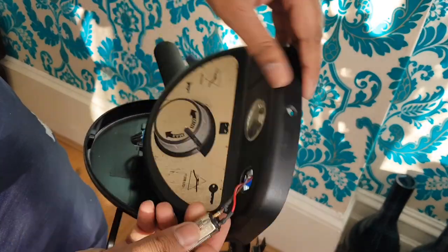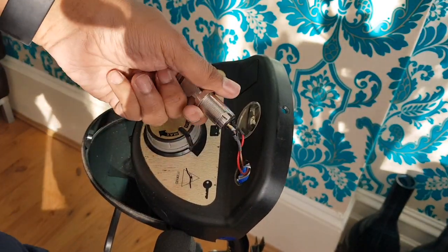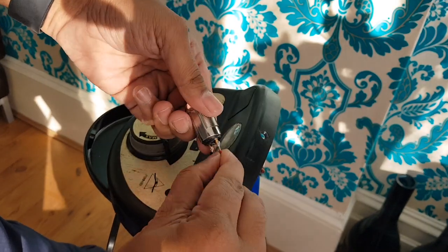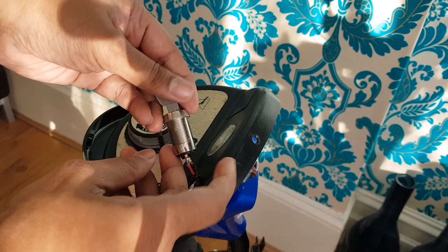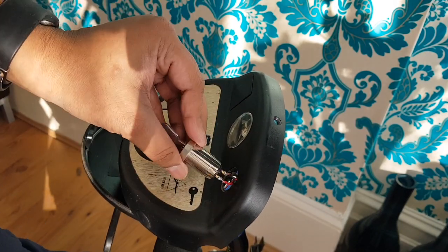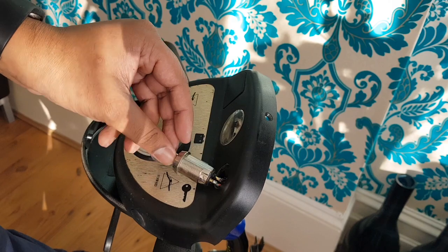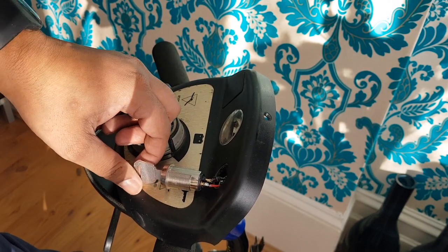Done. You can see it's soldered on, so let's strip this one back. We need to get hold of one of these — or the whole unit including the key. The hardest part is making sure it's the right size to fit in the housing. Even if it's not the same length, as long as the barrel fits in here, we're okay. Let me find one and I'll be back in a bit.